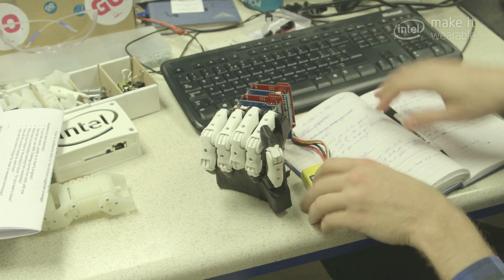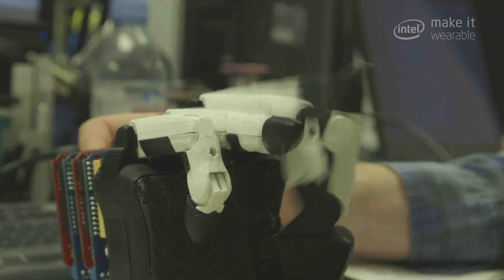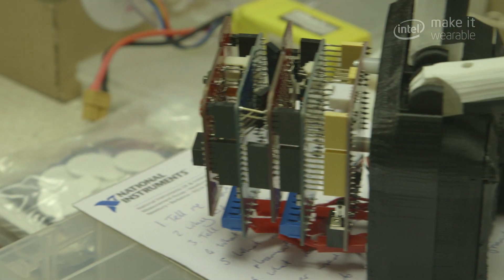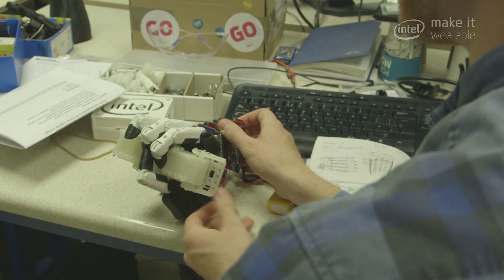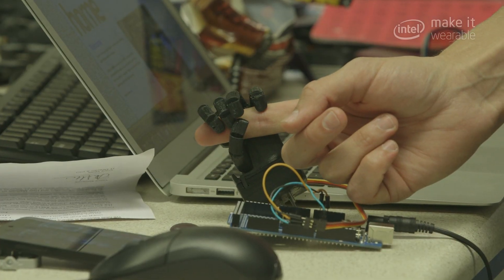Intel have provided the Edison board — this chip is going onto our circuit board and it's going to be used to control the motors of the hand and do some processing on the signals that the amputee inputs. It has tendons just like a human hand, a rubber surface to act like skin, and actuators that pull the tendons which make the fingers move.